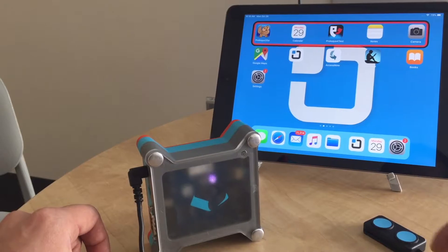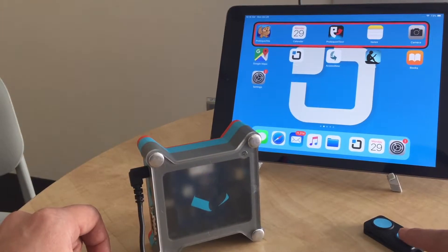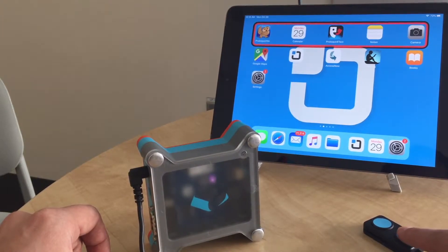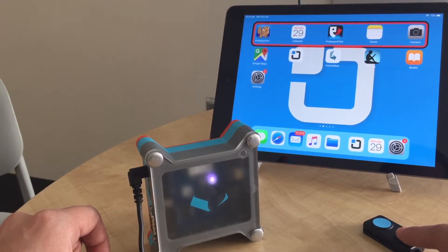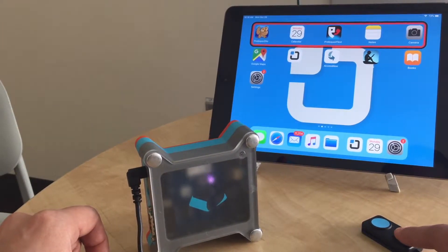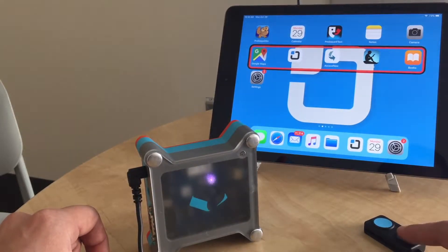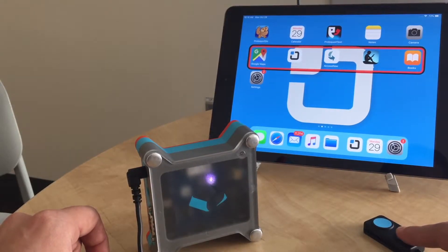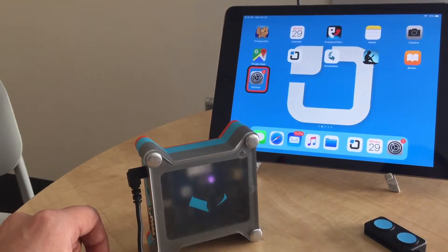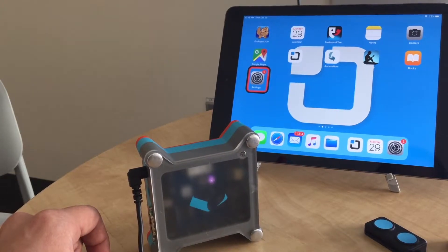If you can see the frame, when I press the switch it should move to the next row, but nothing is happening. When I let go of the switch, that's when it moves.